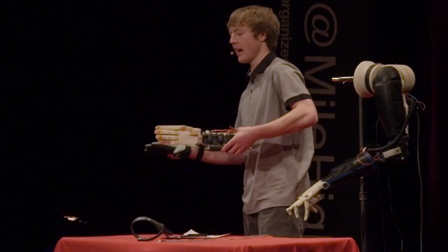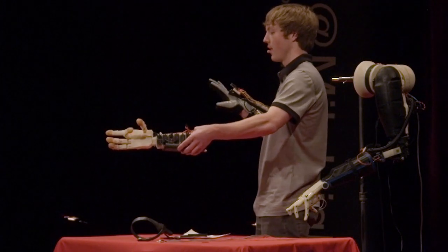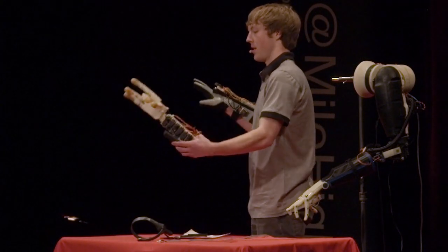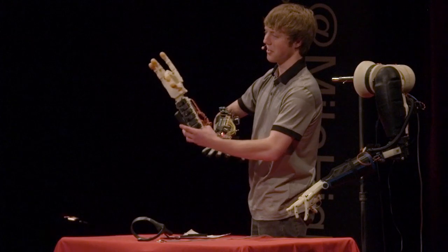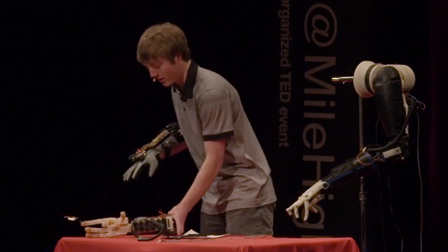You can see that I can accurately control each individual finger. There are no wires attached, so it's all wireless.